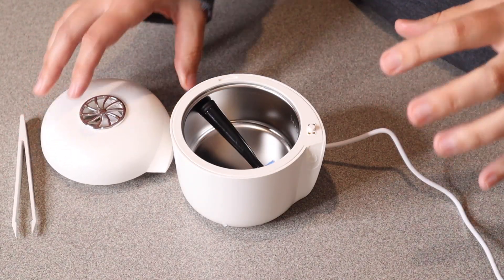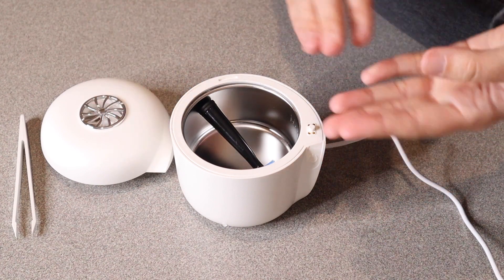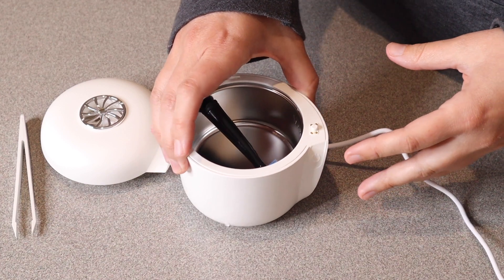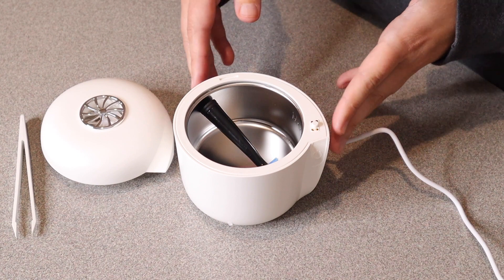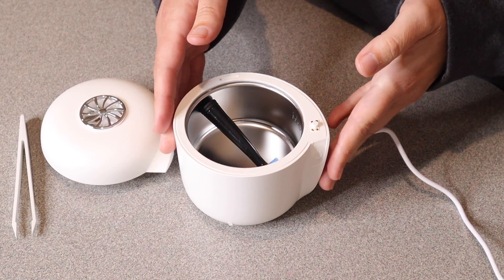Overall I really love how small and portable this is. I like that this one device does everything from start to finish — from cleaning, sanitizing, and drying all in one little container. I could definitely take this with me whether I'm wanting to store it away in a small space in the bathroom or take it with me on my travels.